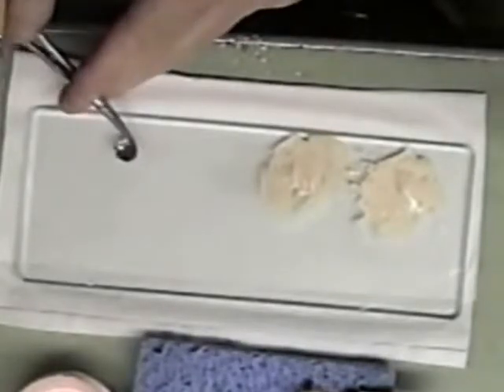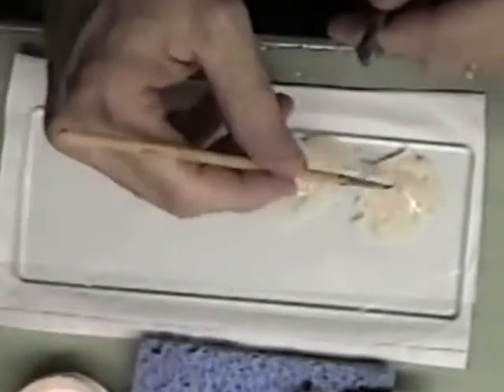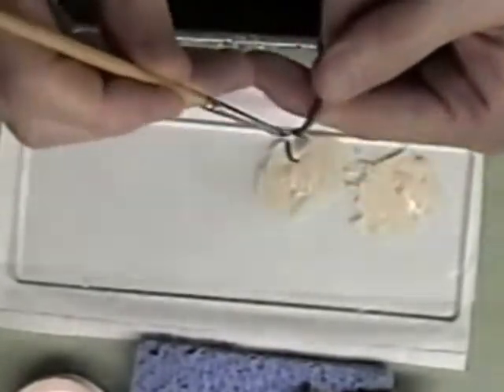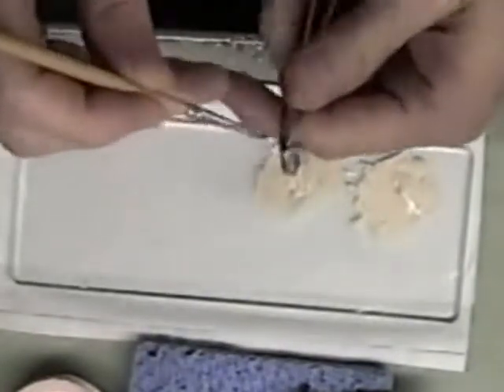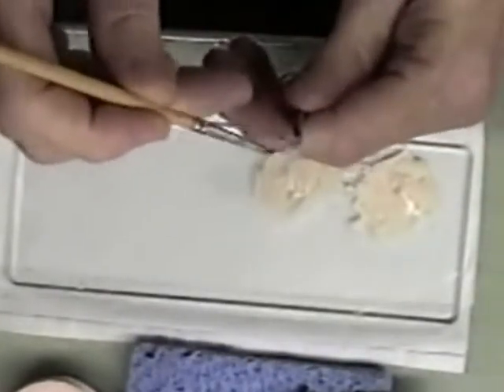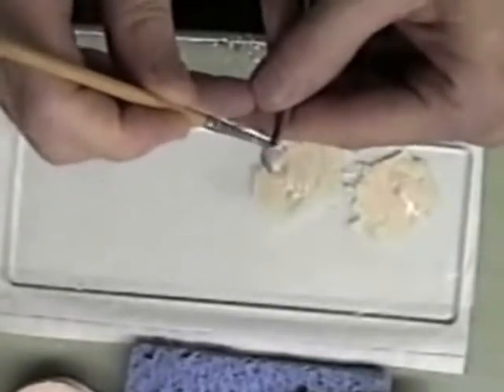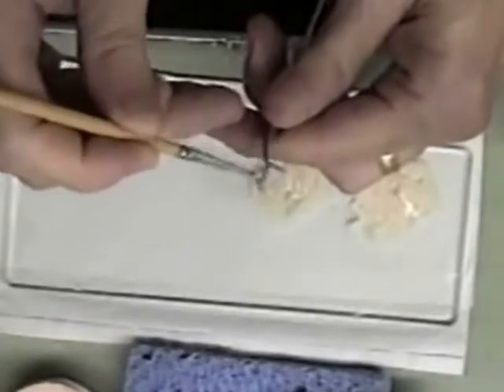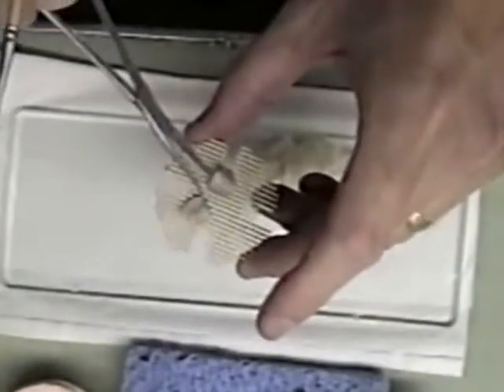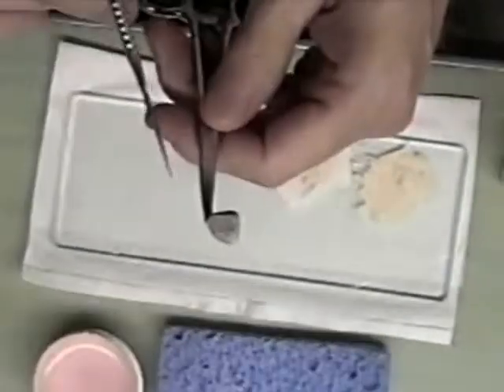I'm going to go with a little bit here, and the same on this coping. This slurry coat will be fired higher than the rest of my opaque coats. It is going to be fired on the metal and will help the opaque to stick better to these copings, rather than if I were to apply the thicker opaque coats directly to them.